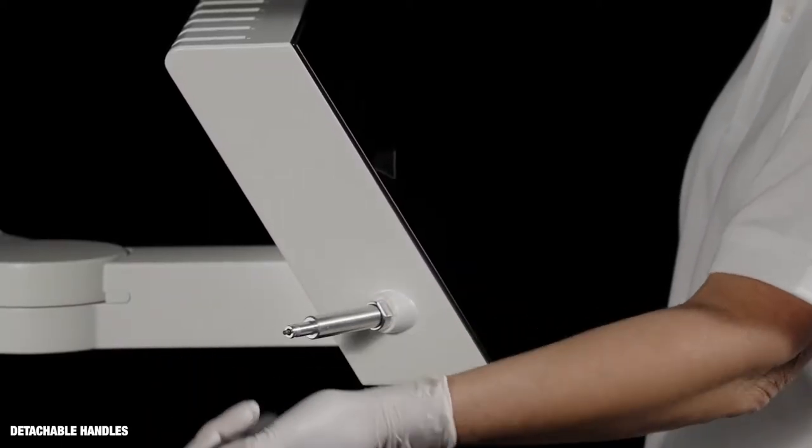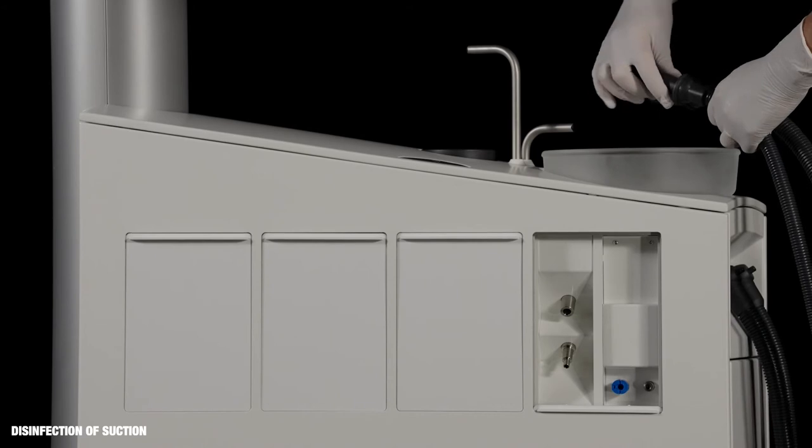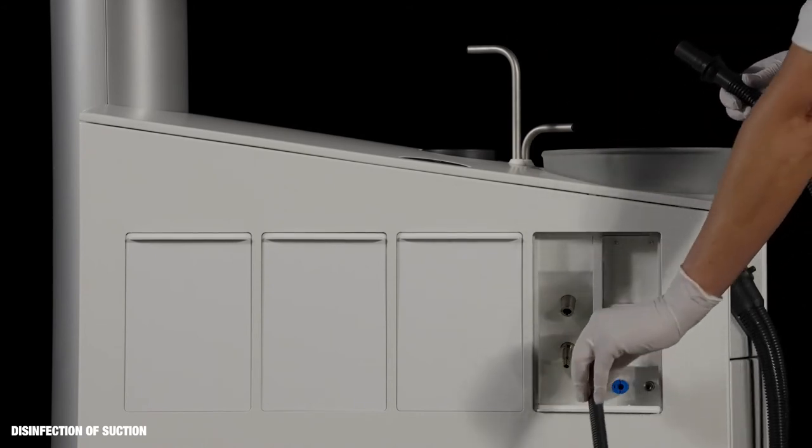Remove and disinfect the handles. Attach the suction hoses to the suction disinfection nozzles.